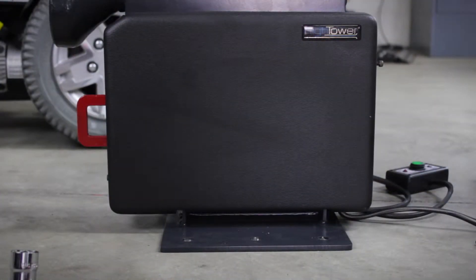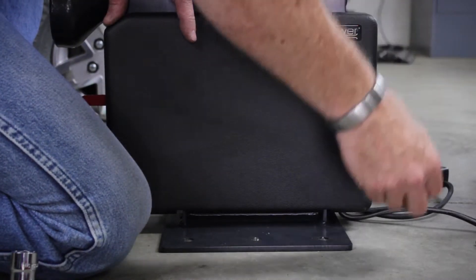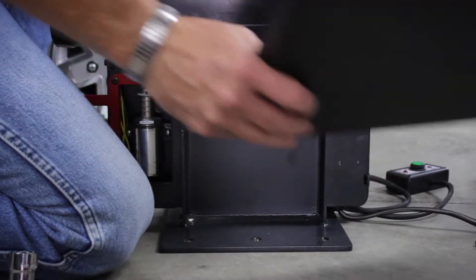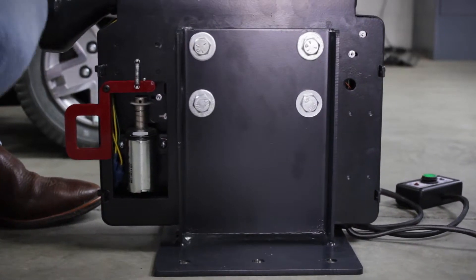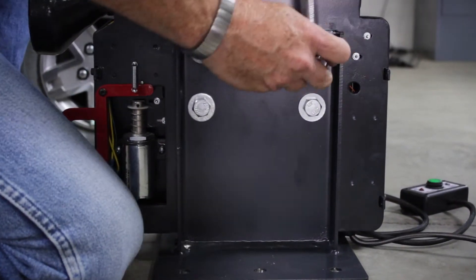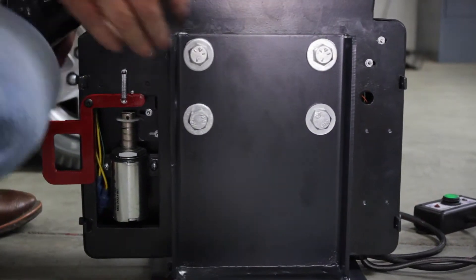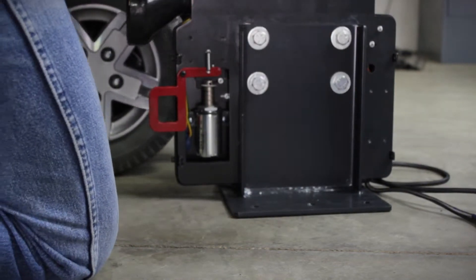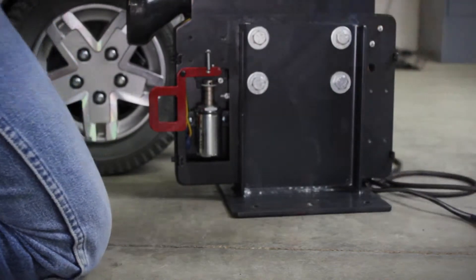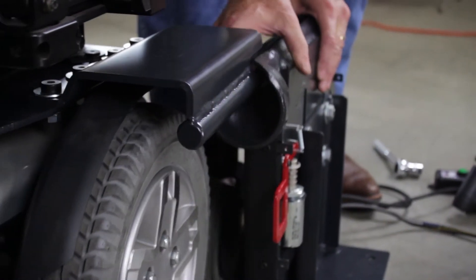With the frame brackets securely attached, it's time to conduct your first alignment test. Taking the ABS cover off the Hightower unit, you'll be able to see four bolts. These bolts can be adjusted so that the Hightower unit can be set at any vertical height necessary to meet the needs of the wheelchair. Loosen these four bolts and then place the unit up alongside the power wheelchair. At this time, take the side mounted bracket and drive it into the Hightower docking station.